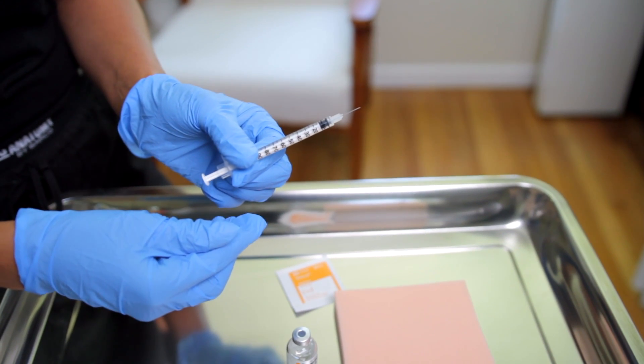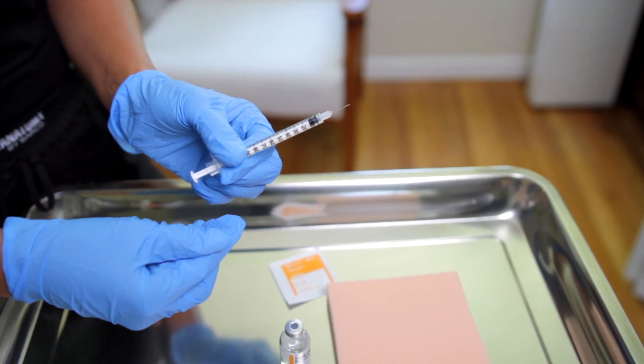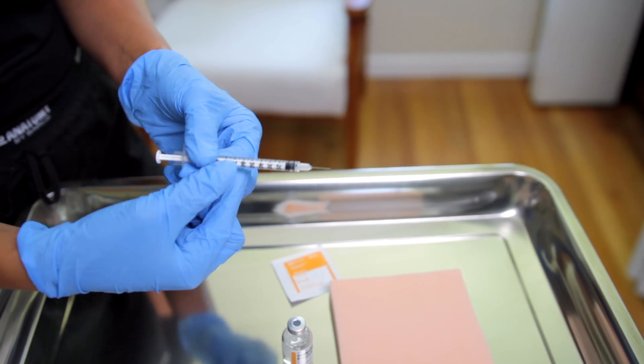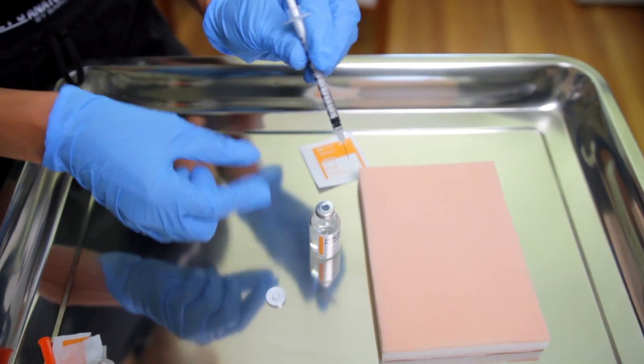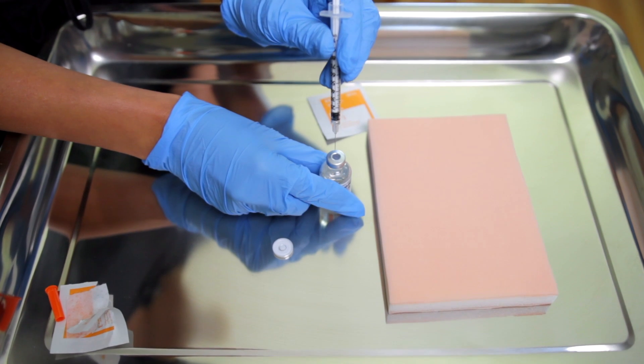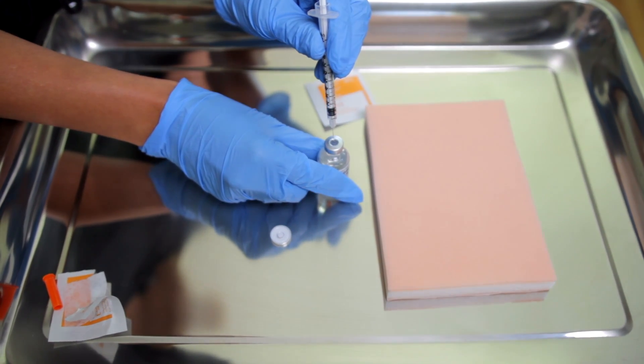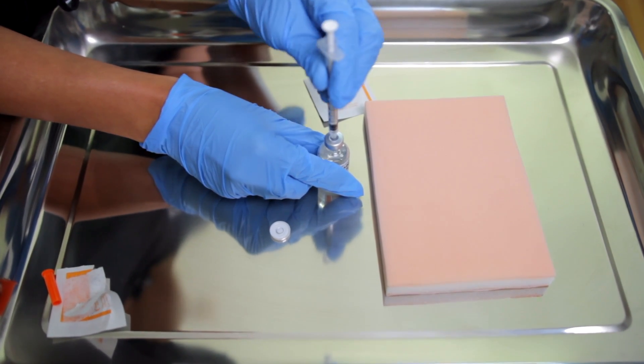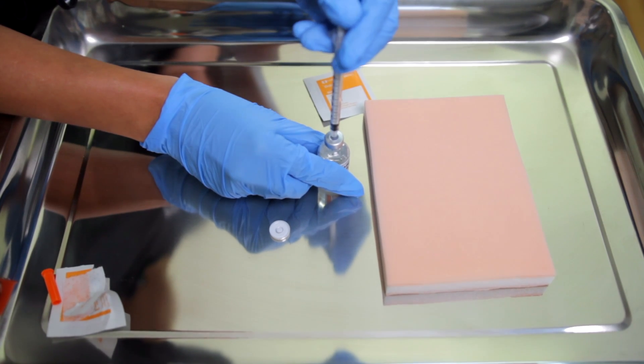So that's the amount of air that you're going to inject into the insulin. I'm going to put the needle down and I'm going to hold the insulin vial. I'm going to inject like a bullseye into the center and I'm going to put the needle inside and push the plunger down.